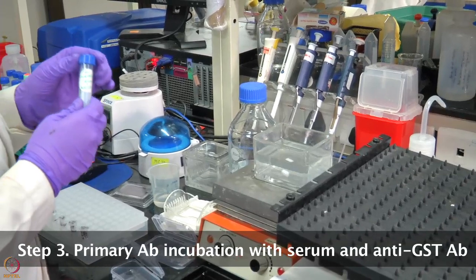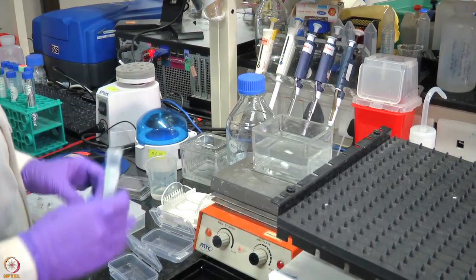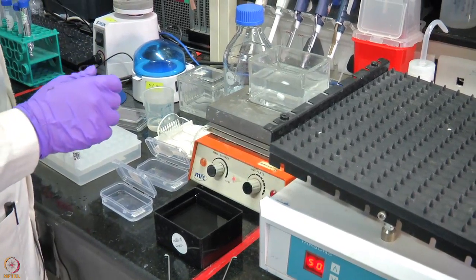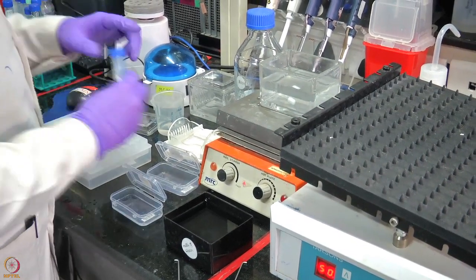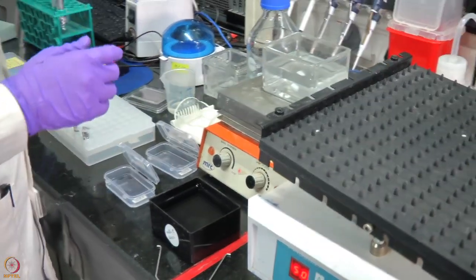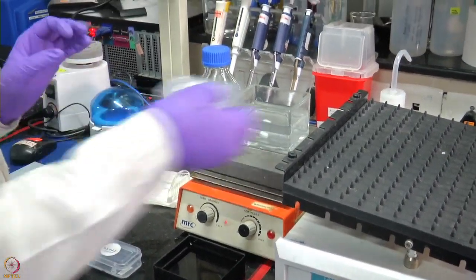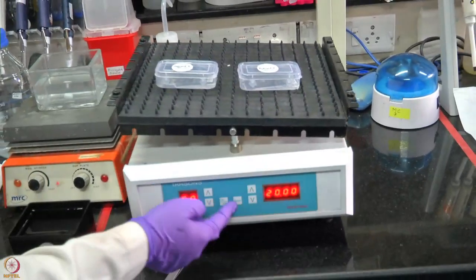The cocktail contains serum and anti-GST antibody in BSA and TBST. This is done for 2 patients, so we place the primary antibody in 2 different boxes. For patient 2, we place the sample onto the slide. Again, this slide is incubated with the human serum and anti-GST antibody for 2 hours on the rocker.